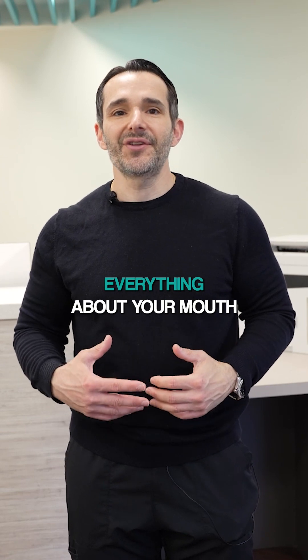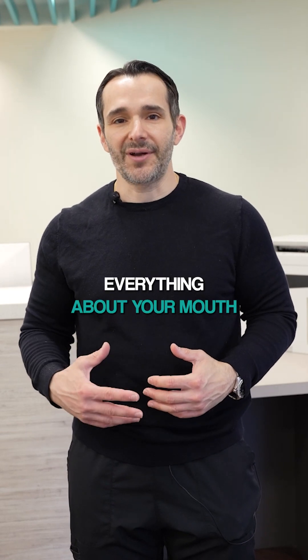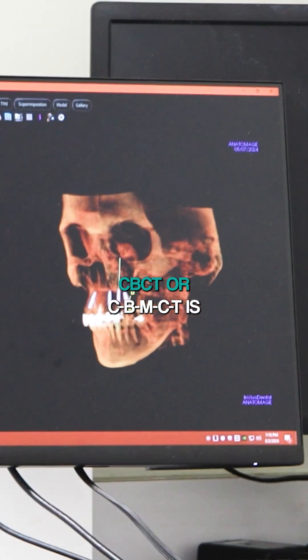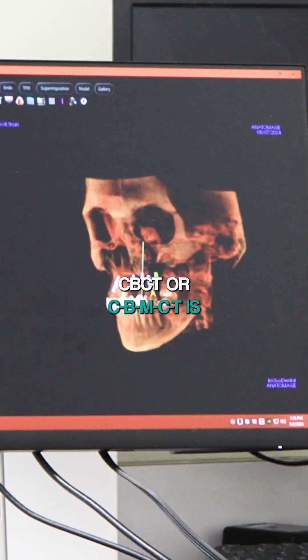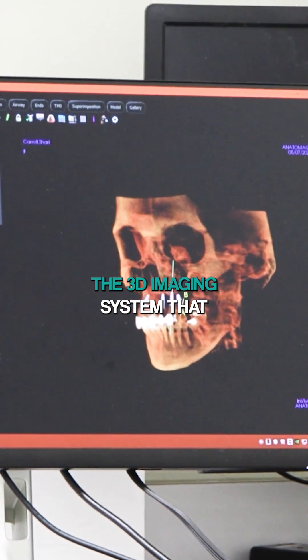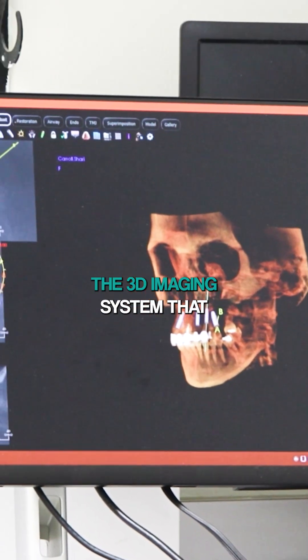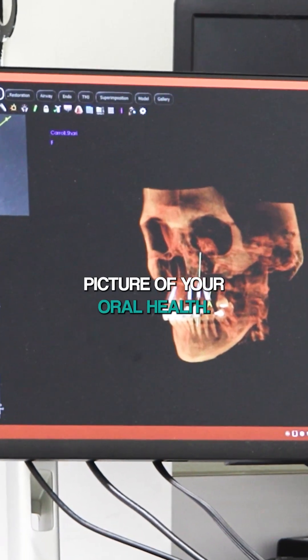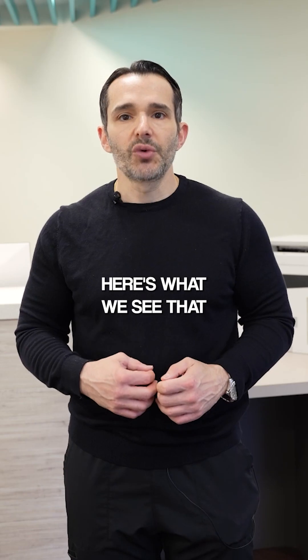The scan that tells us everything about your mouth — and I mean everything. CBCT, or cone beam CT, is the 3D imaging system that gives us a complete picture of your oral health.